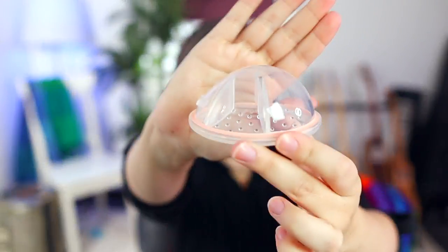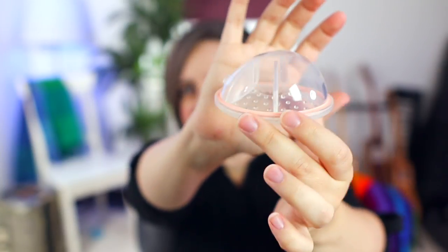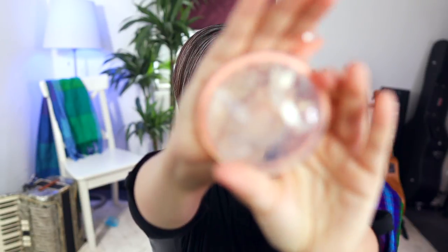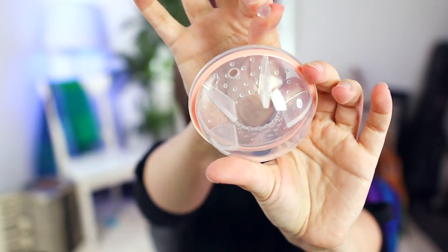Let's start with the lightest suction and milk removal and go towards the heaviest. So this is just a plain old milk catcher. There's no suction really — it's just for catching leaking milk. This one is nice because it has these wedges in there to help it stay firm. So this is great if you have sore nipples or you don't want something touching them. It just goes on like this — no suction, it just sits on the breast. There's a little hole up top and a little plug that goes in it. That thing is easy to get lost, FYI.